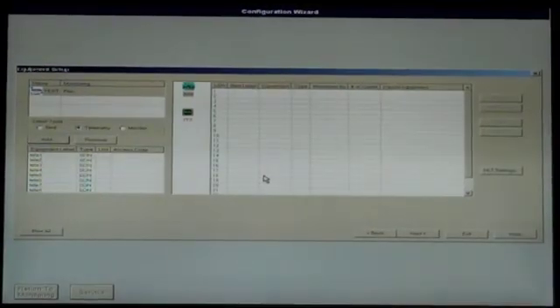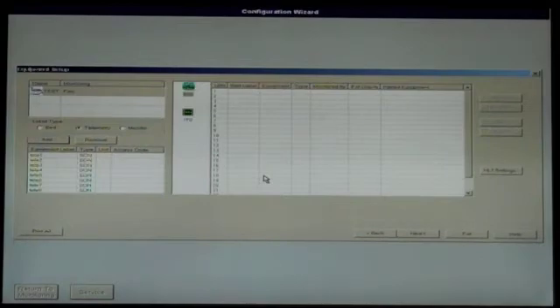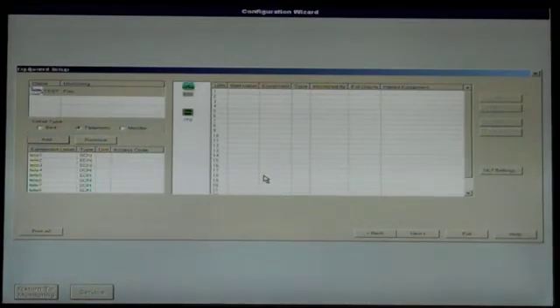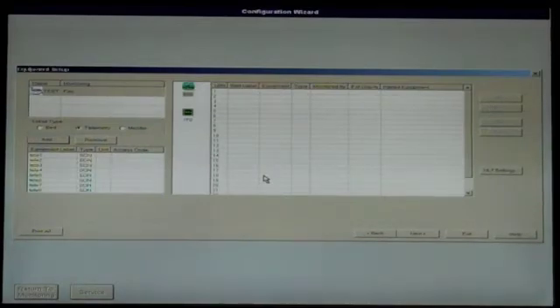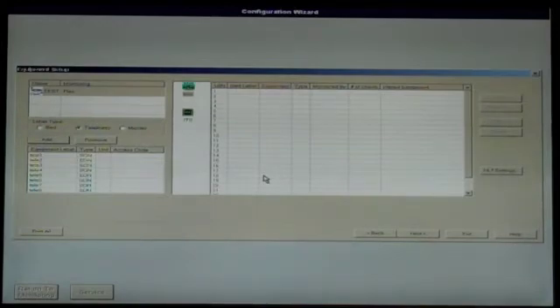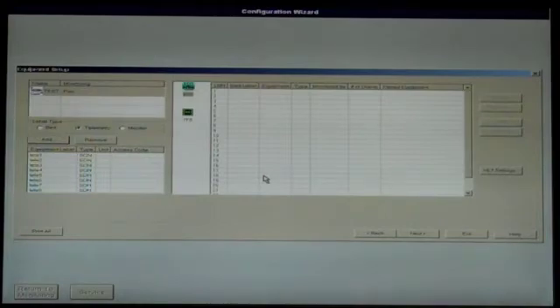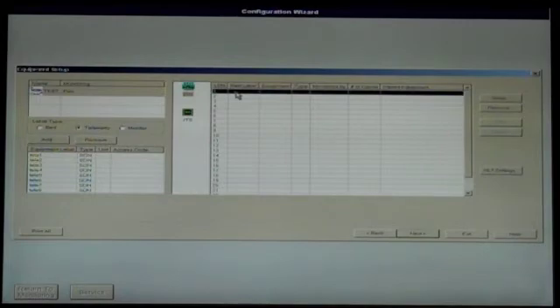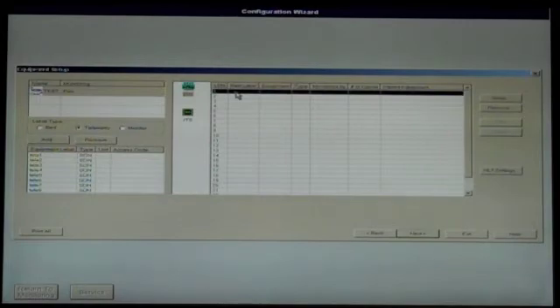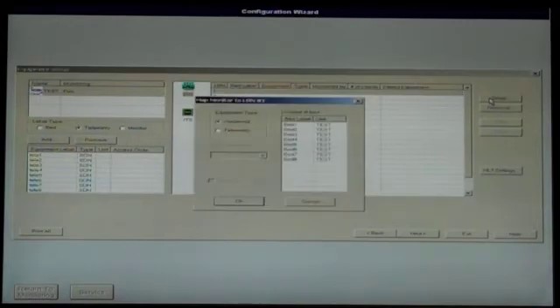Once you have finished adding the required beds and telemetry, you will need to assign them to the LBN numbers in your mainframe. It's either programmed to sectors 1-8, 9-16, or 17-24. To do so, select the first LBN in your mainframe's programmed range, then click Setup.